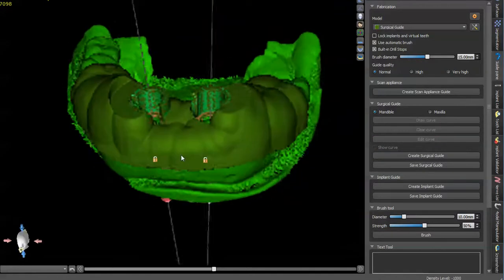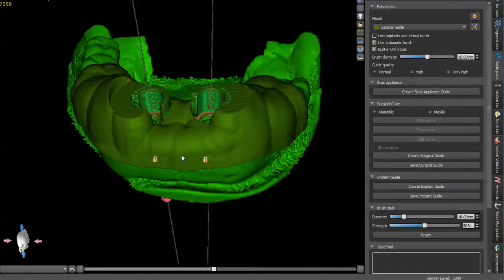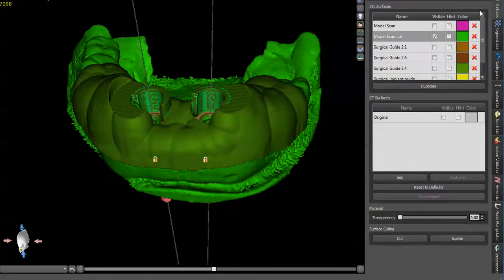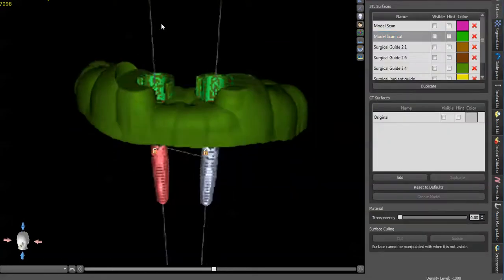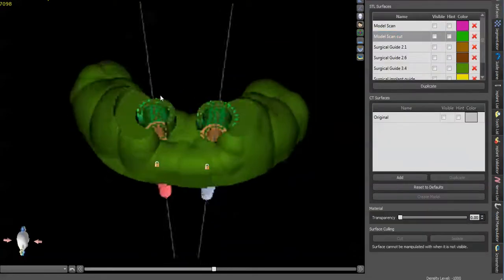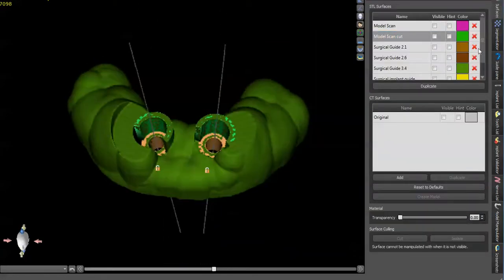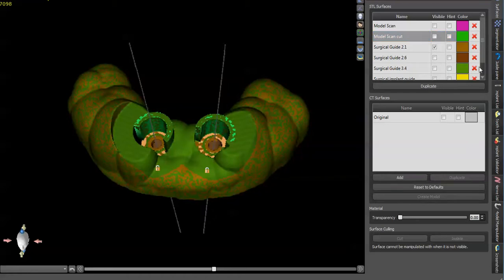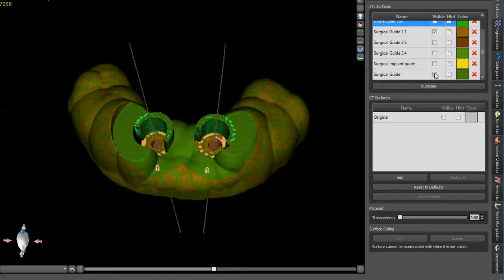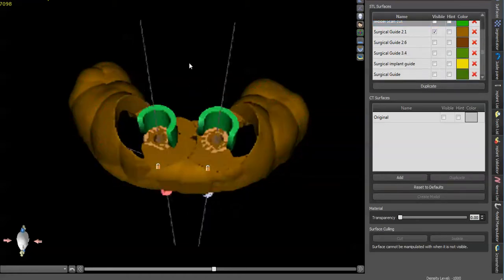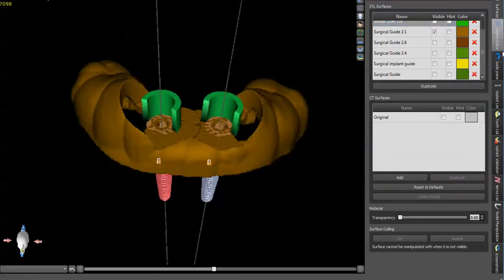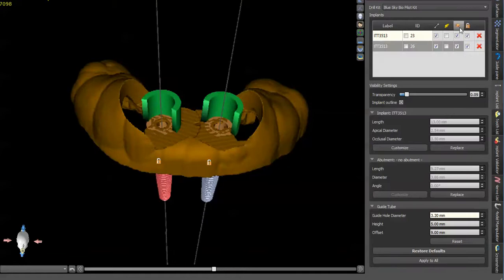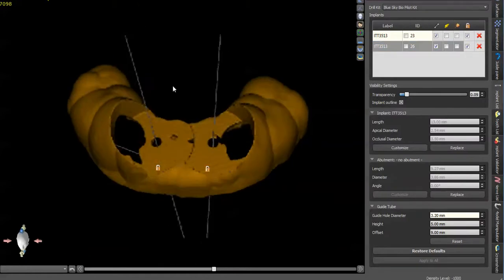You can see what that looks like here. And I'm going to show you a comparison of what that looks like from the previous ones that I've made. You can see it's a little bit bulkier up top. Let's see, turn this off.